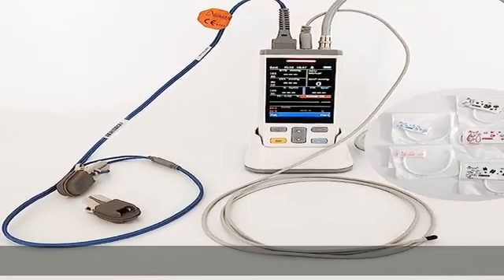Data storage capabilities support historical data view and trend chart back for checking.